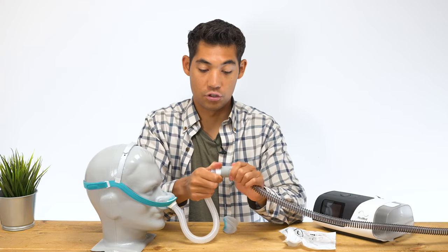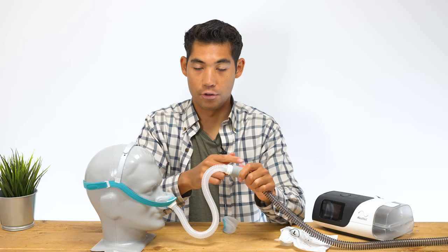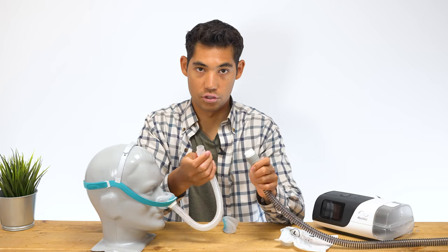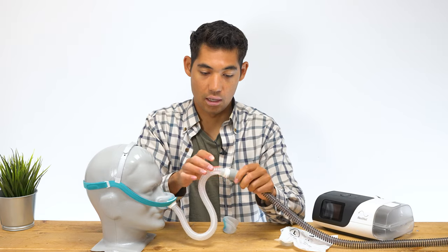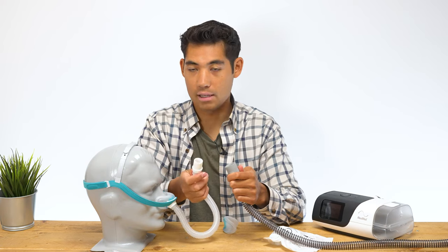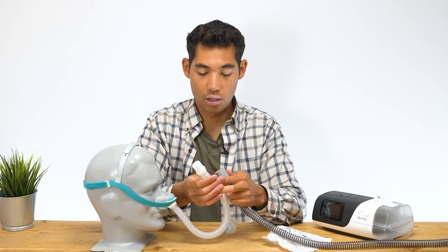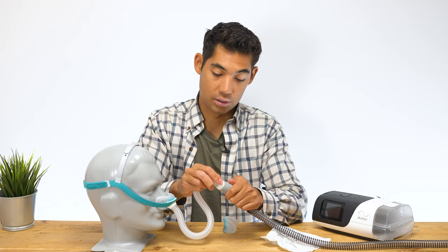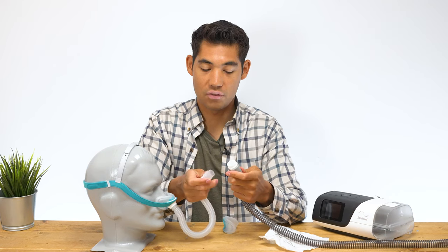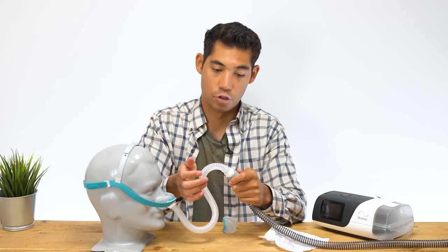To remove the tube, you can just twist it off like that, and to put it back on, it goes like that. There is also a quick release — if you just pull the end of the tube straight, it'll just pop off. And if you want to take the whole thing off, just remove it. A lot of masks have this feature, whether it's an elbow up top or a tube up front. So you might notice a remainder piece on your old tubing and wonder why your new mask doesn't fit — it's often just the quick connection portion.